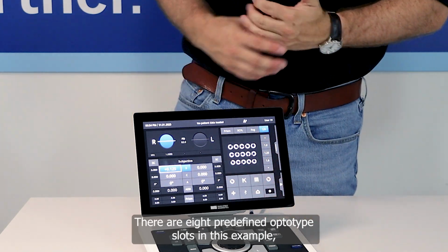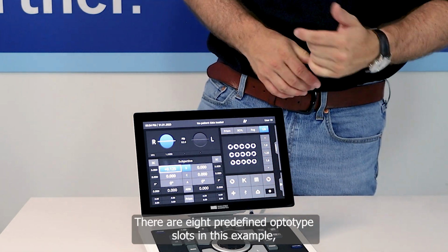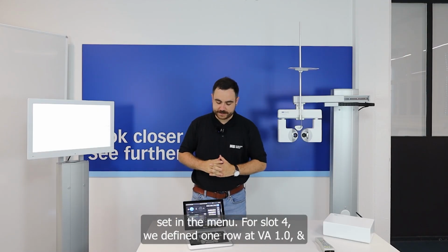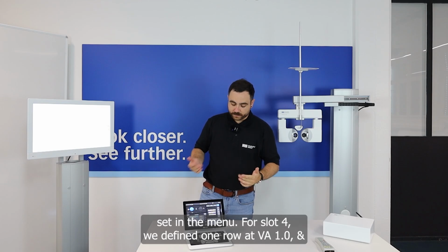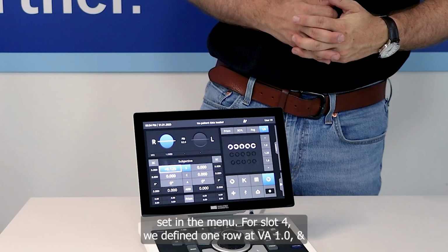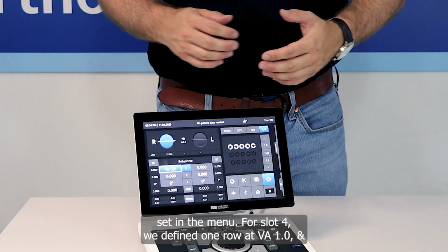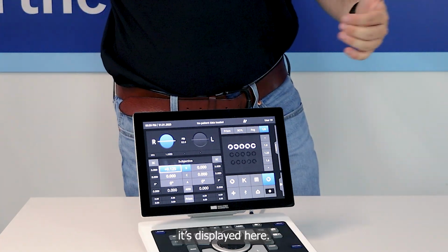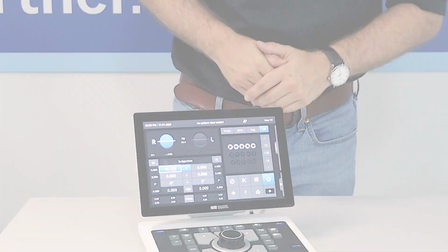Under it, there are the 8 predefined optotypes. Currently, those are the predefined optotypes we decided in the menu before. And here, for the 4th predefined optotype, we had 1 row with a visus of 1, and it's displayed right now here.